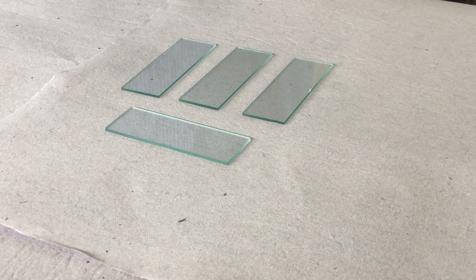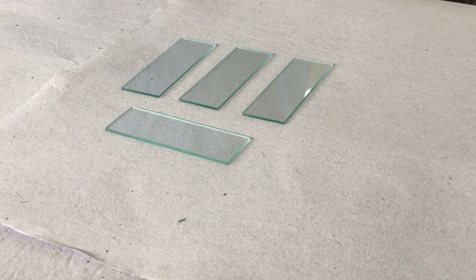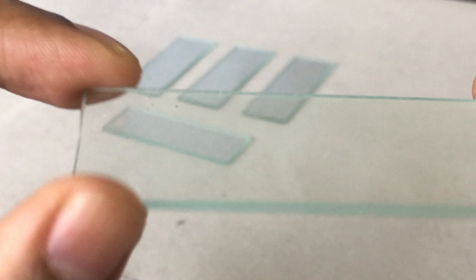Welcome students to our physiology practical on how to make a smear. For making a smear, you need a glass slide and a spreader. A spreader is nothing but a glass slide with sharp margins.